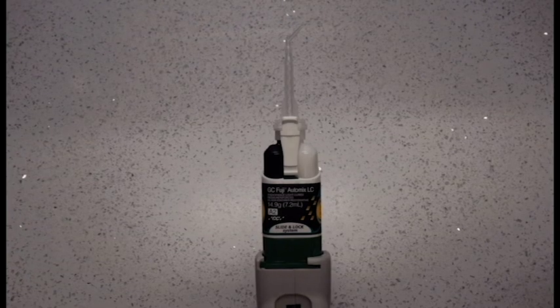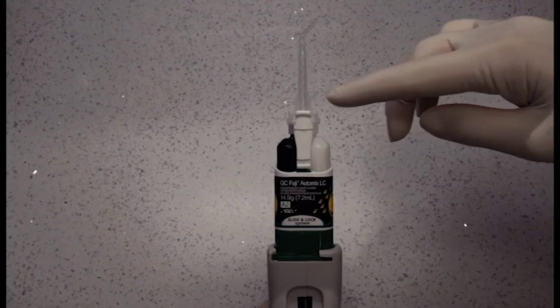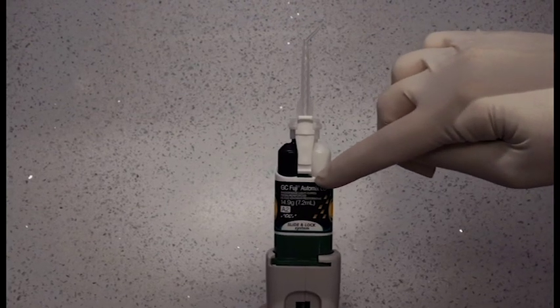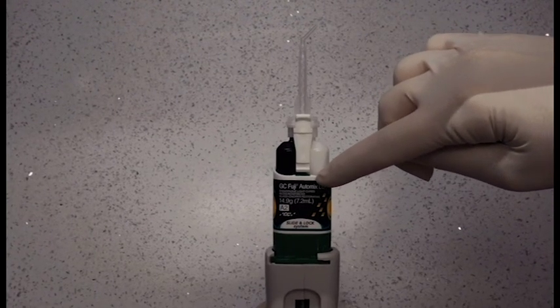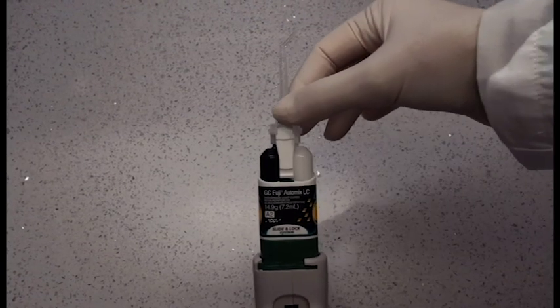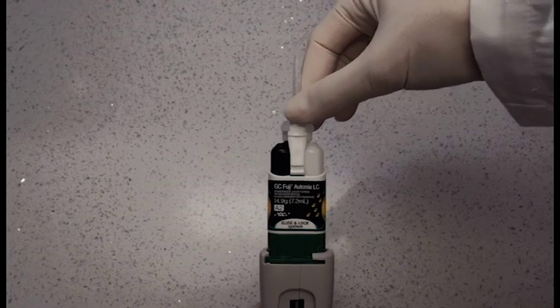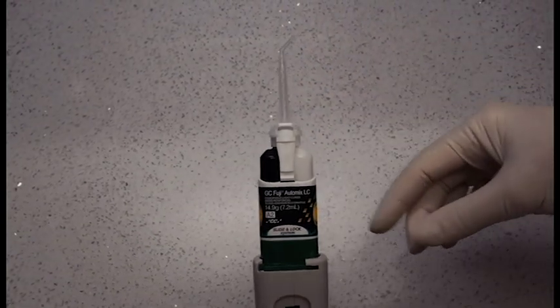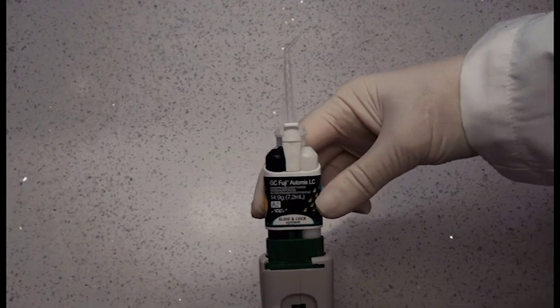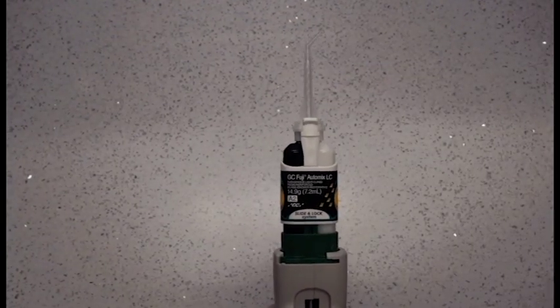Here is a view from another angle when inserting the tip. Once the syringe tip is aligned in the cartridge, you will notice a small gap between the syringe and the cartridge. This indicates that the syringe is not completely seated in place. Press the syringe tip in place until you hear a click. Once you hear that click, you can lock the syringe tip in place by sliding the cartridge towards the tip. Once this is completed, it is ready for use.